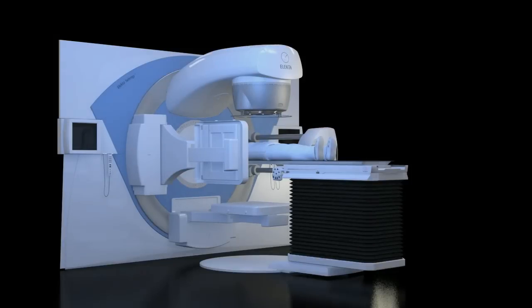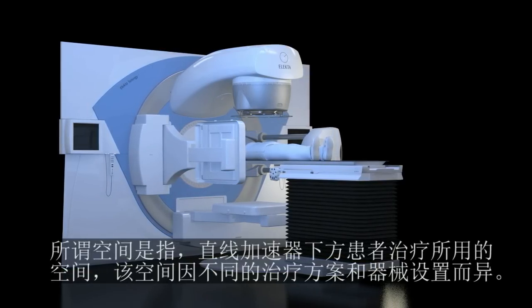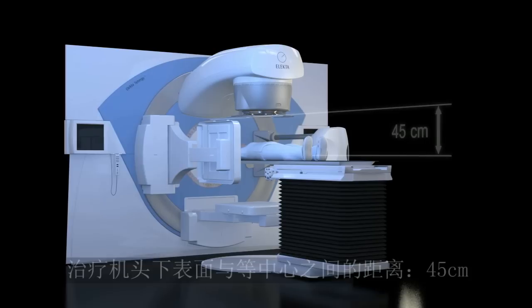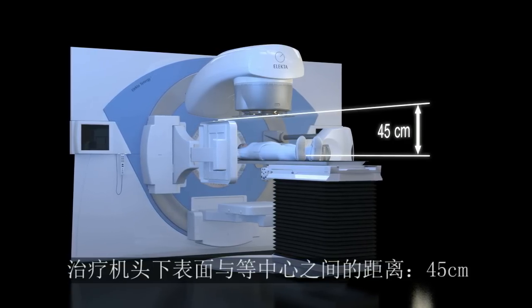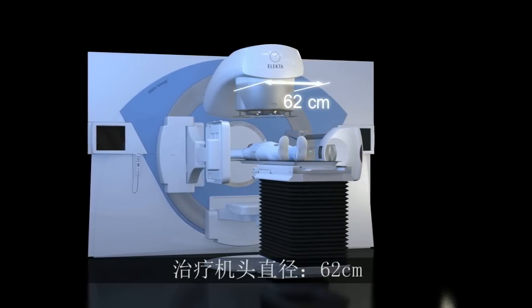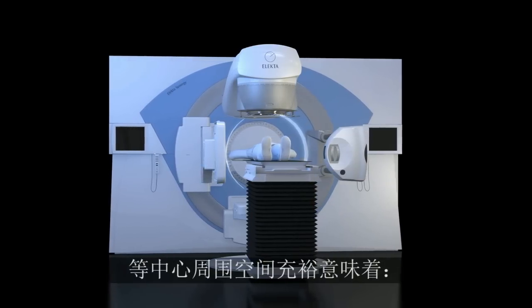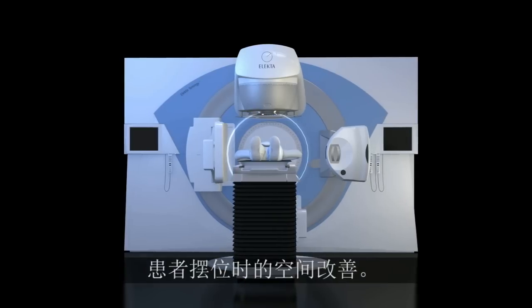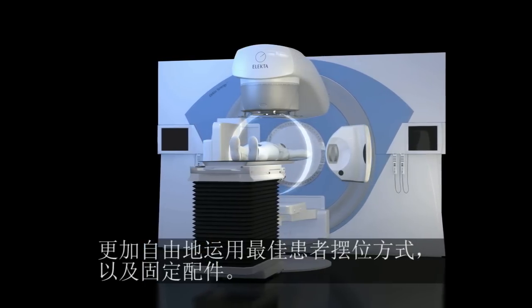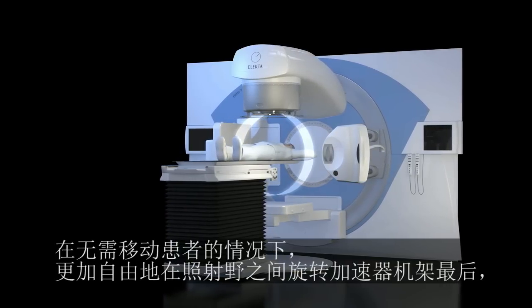Clearance is the free space available under the linac for patient treatment, and it varies with different protocols and fixation devices. It is a combination of the distance between the lower surface of the radiation head and the isocenter — 45 cm — and the head diameter — 62 cm. A wide clearance around the isocenter means improved access for patient setup, freedom to use the best possible patient positioning and immobilization accessories, and freedom to rotate the gantry between fields without needing to move the patient.